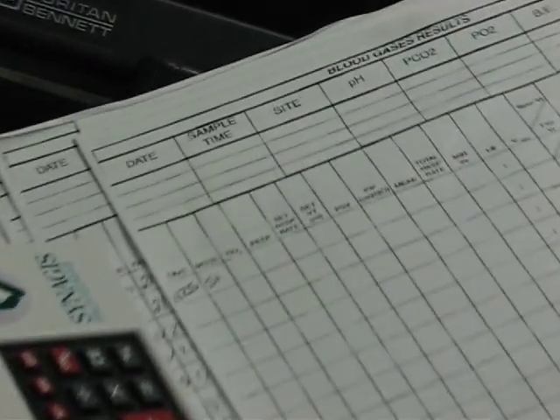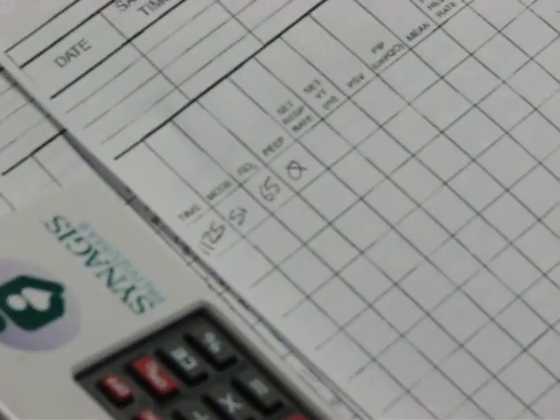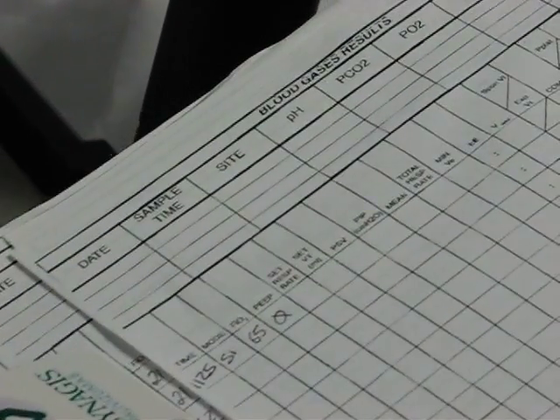Then your FiO2. I hit my FiO2 button, and I'm on 65%. You don't need to put the percent sign. Everybody, again, knows what that is. Our PEEP is 0. Our set rate. Now our set is everything down here again. Our readouts are everything up here. So our set rate would be the one down here, and it's 10 breaths a minute.